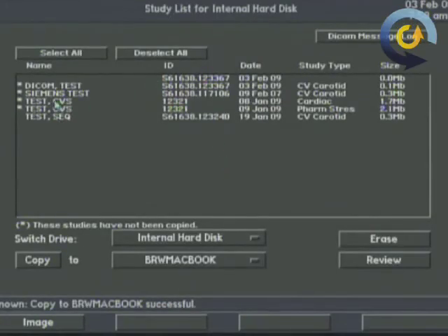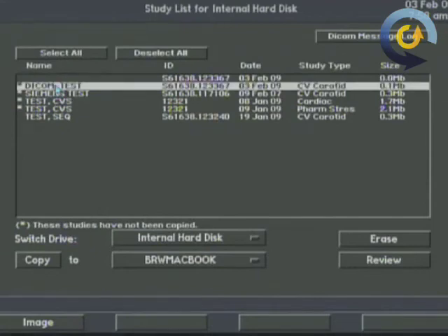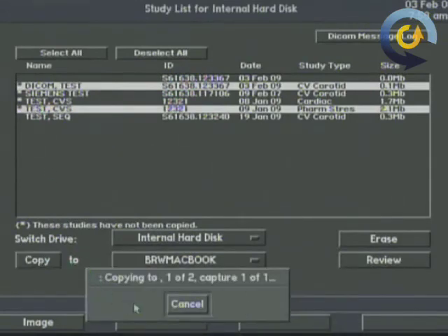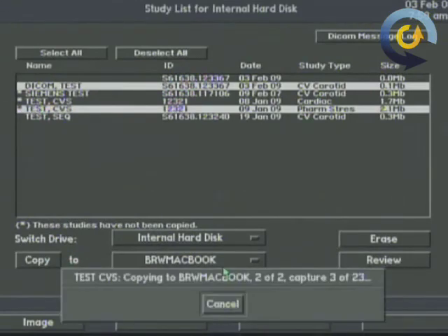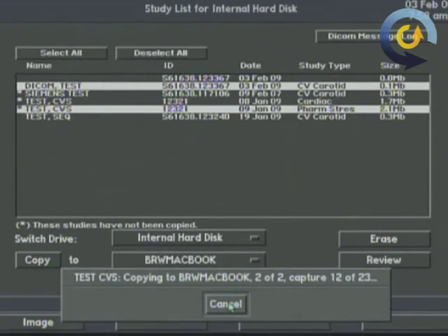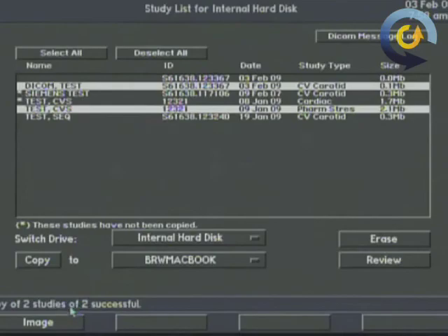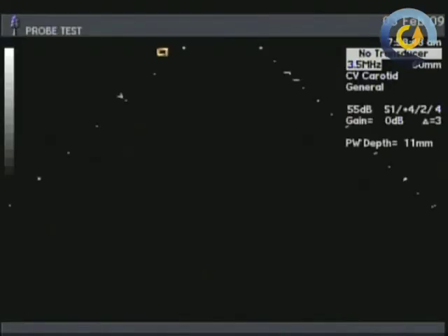However, we've got a couple items here. We went to study utilities and the ones with asterisks were exams that were not sent. Maybe you were mobile at the time. Check a couple of them. It's set to send it to that server. MacBook Pro. Hit copy. Shows it's sending them over. 2 of 23. 15 of 23. And it's already sent them all over. They've now been sent to my MacBook, the server. Got a passive DICOM listener there. And those are on my DICOM software.